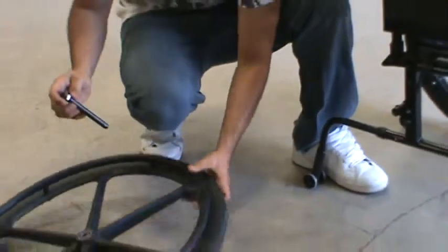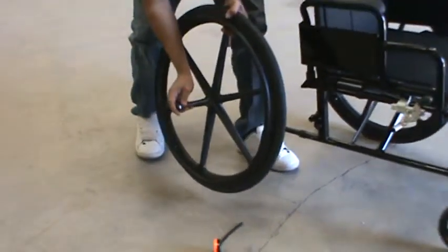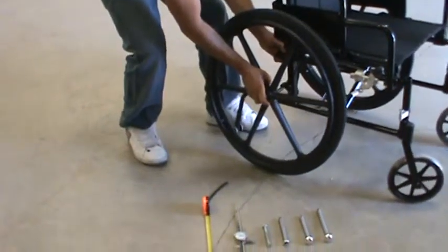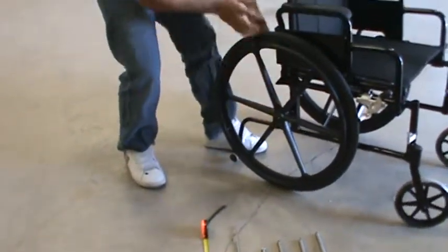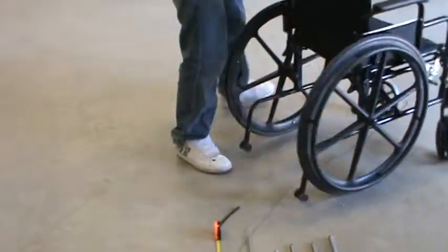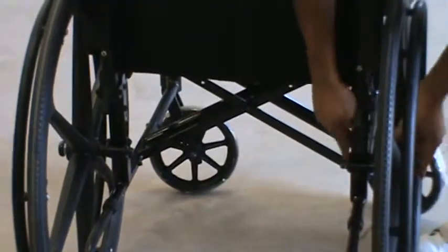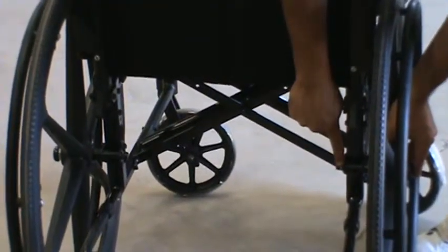So we'll test it. We'll put it through the center of the wheel and into the axle receiver. And then you pull slightly back, make sure it's secure. Also, to make sure it's measuring right, you look on the inside and the ball is all the way through the receiver.